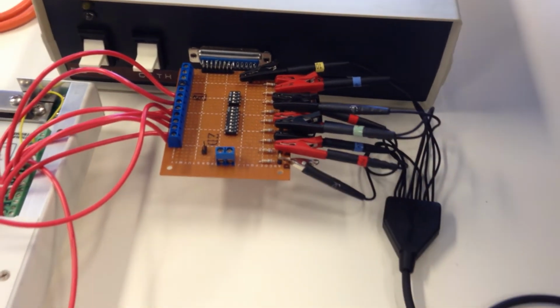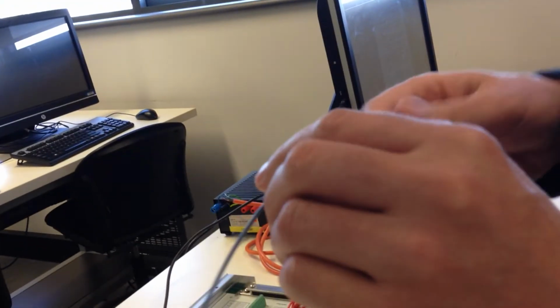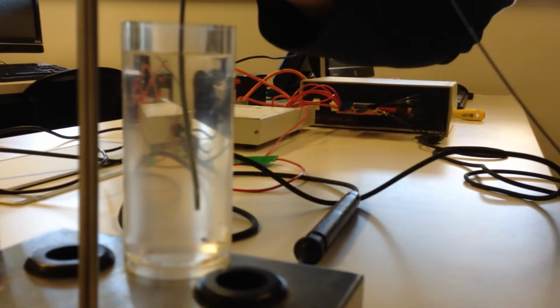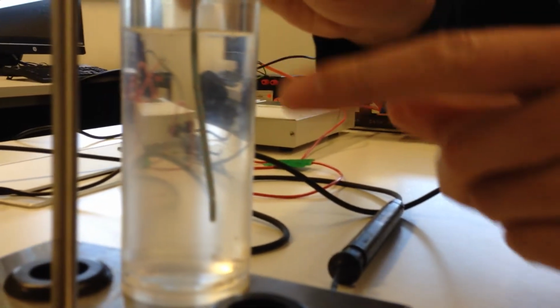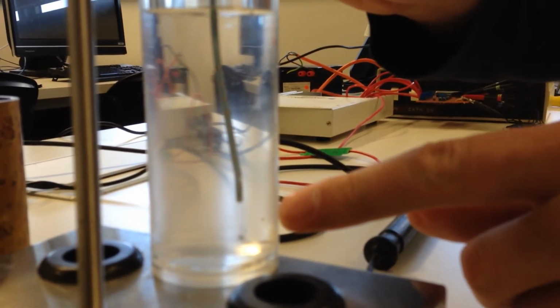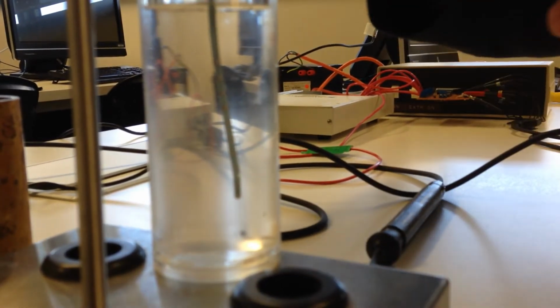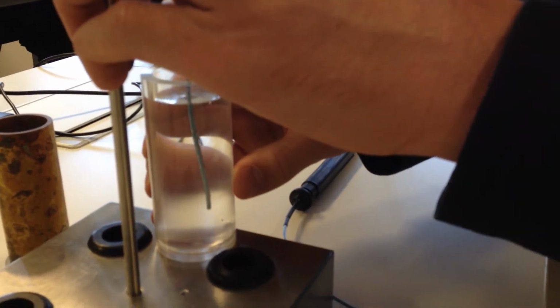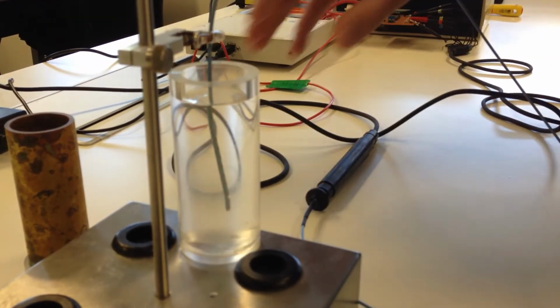So now what will happen is the current will be forced to go through the catheter. So we're ready for the fluid part of the experiment. So you'll put it into this model of the ventricle. Try and get it pretty much so the 10th electrode is the same distance from the top, the meniscus, as the bottom, the first electrode, is from the bottom. You won't get it perfectly because the catheter is a little bit curved. Try and center it down the radial line as well, and that will do.